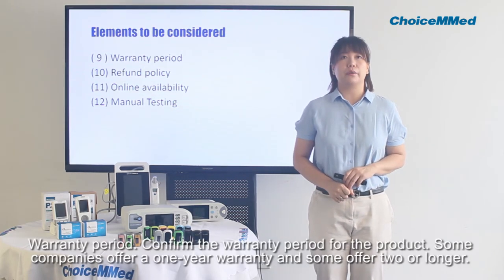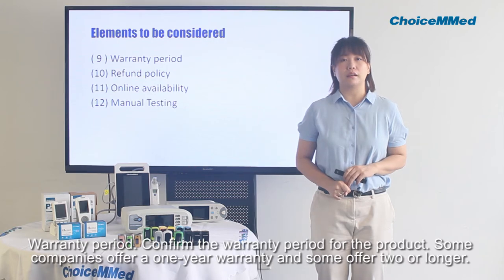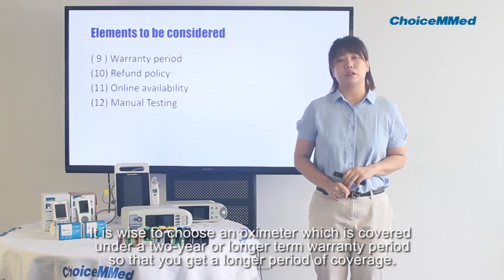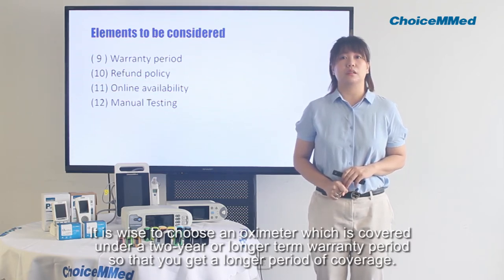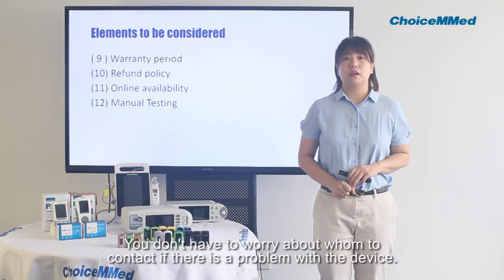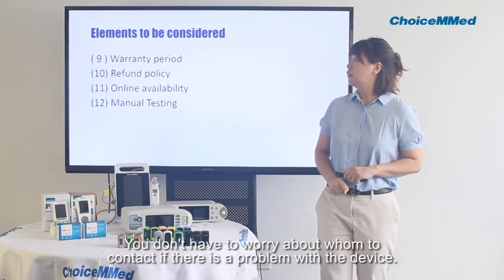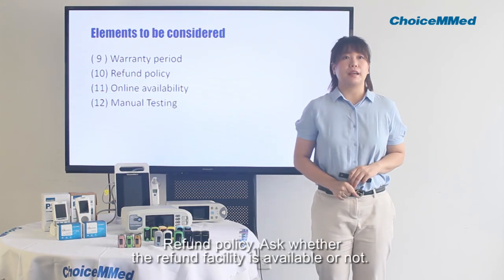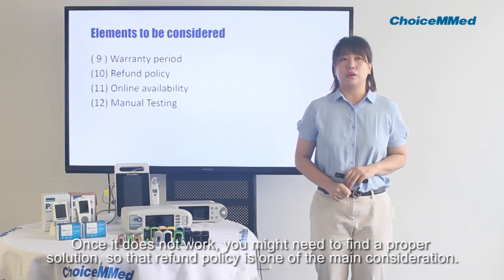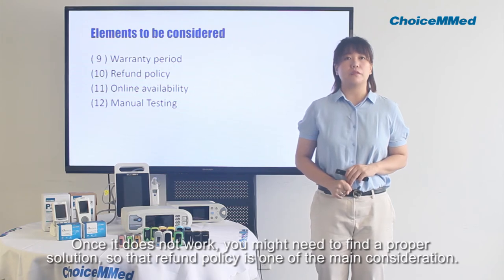Confirm the warranty period. Some companies offer 1 year and some companies offer 2 years or longer. It is wise to choose an oximeter covered by a 2-year warranty or longer term, so that you get a longer period of coverage and don't have to worry about who to contact if there is a problem. Also, ask whether a refund policy is available, since if the device does not work, you might need to find a proper solution. Refund policy is one of the main considerations.